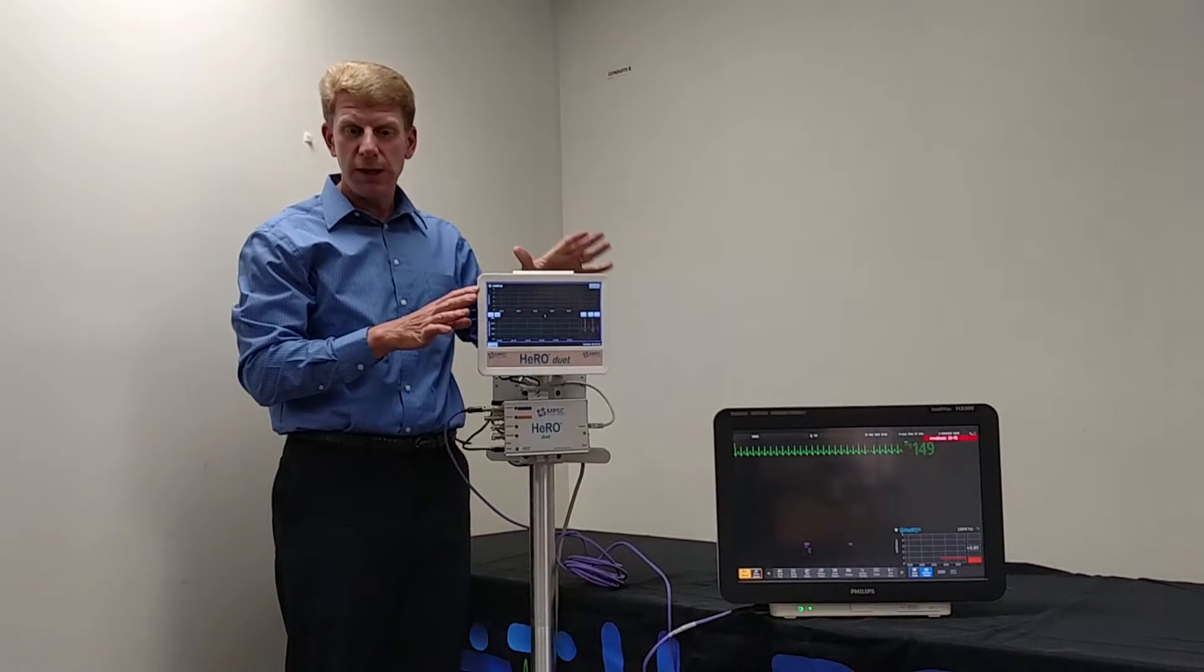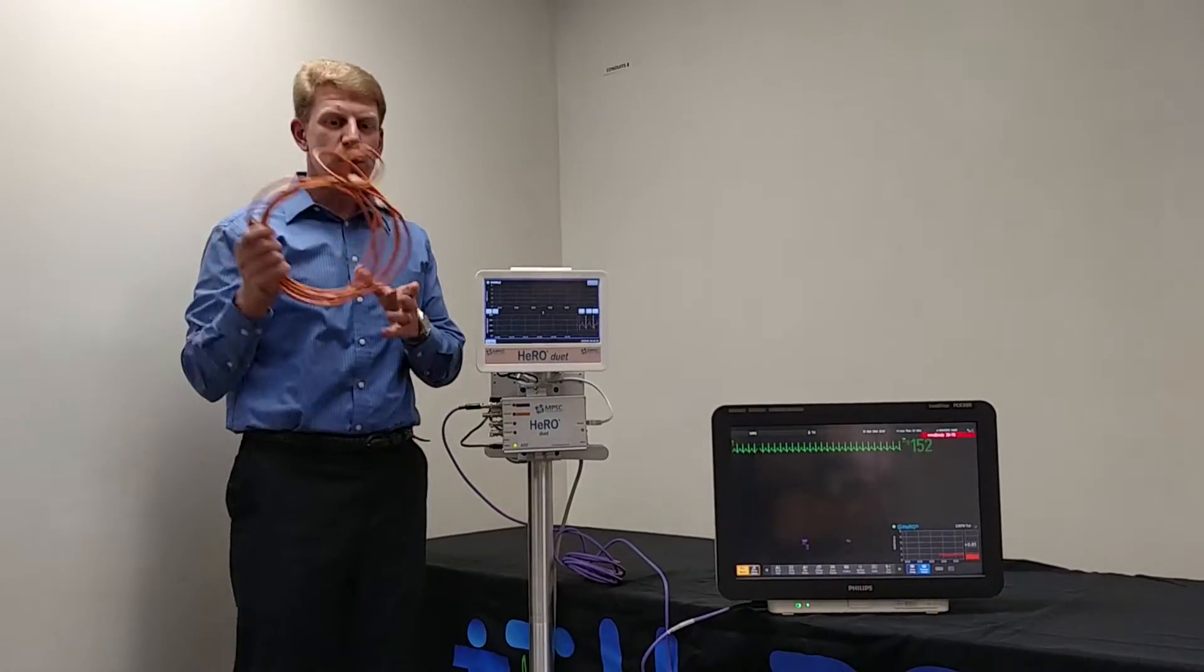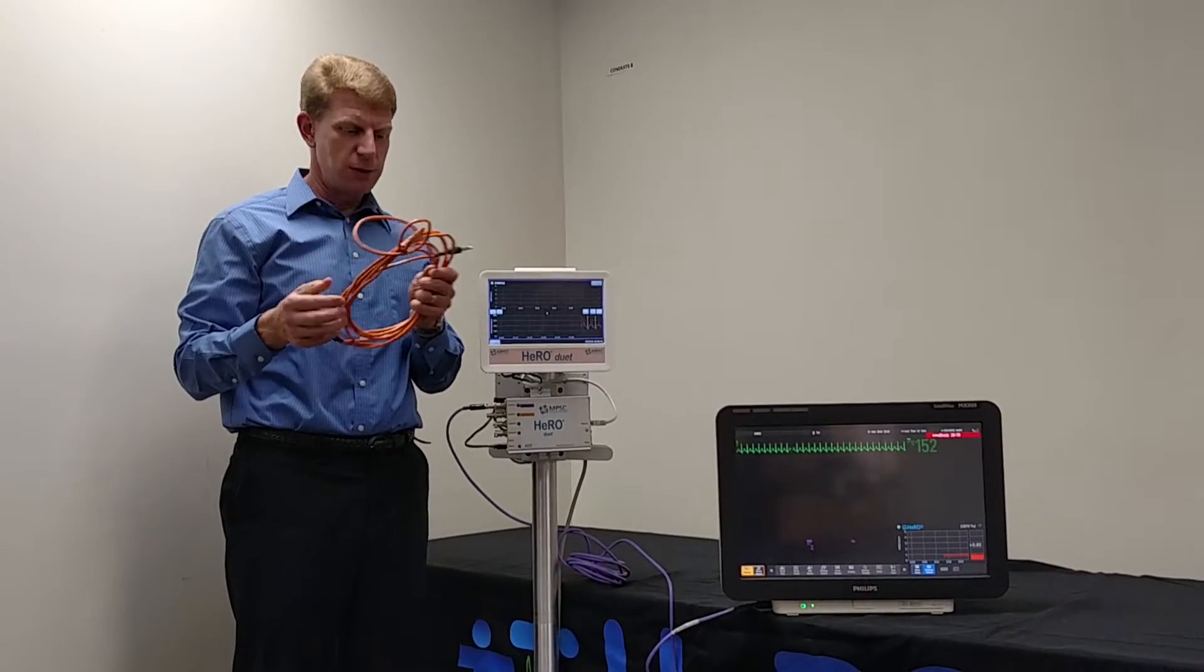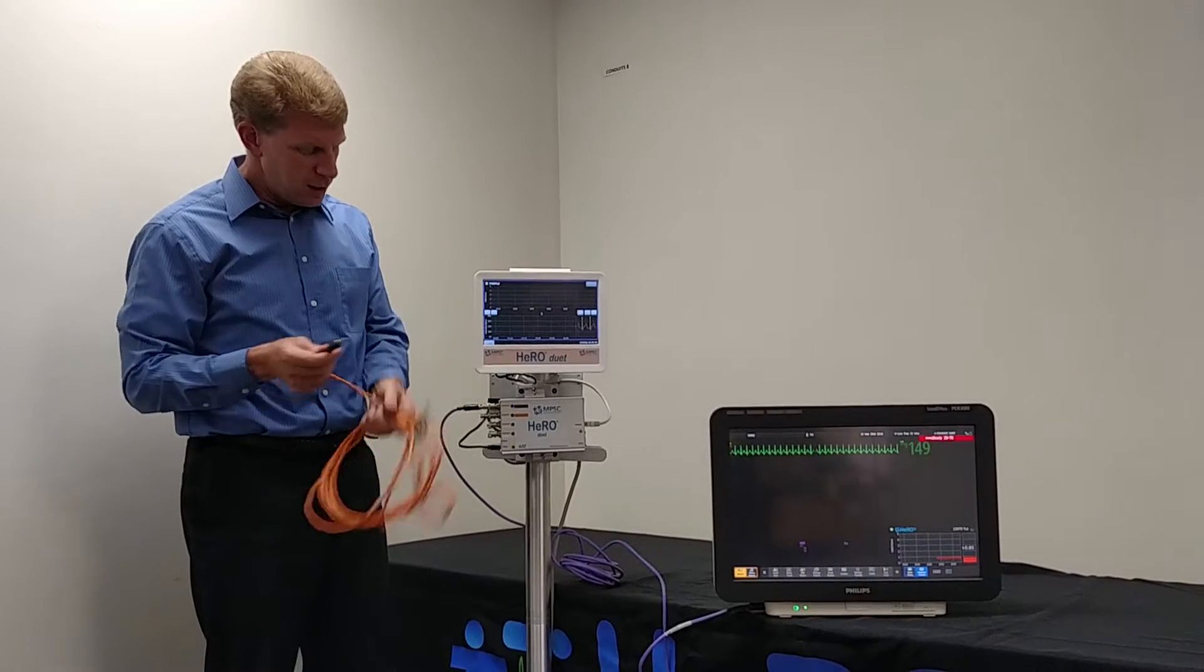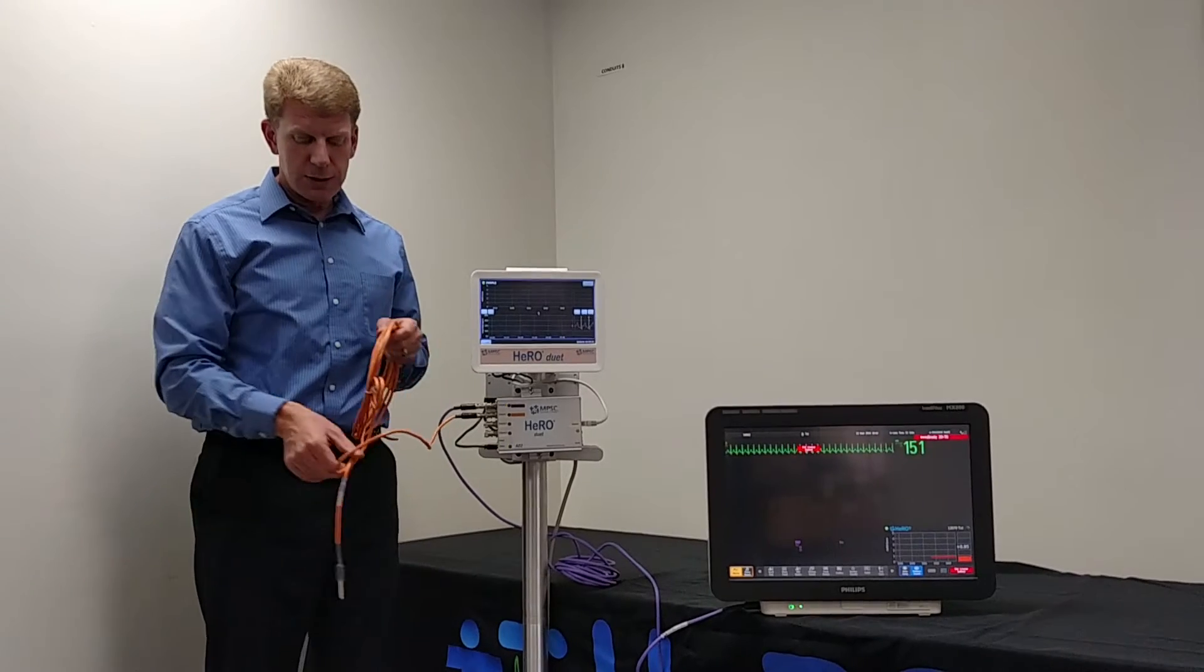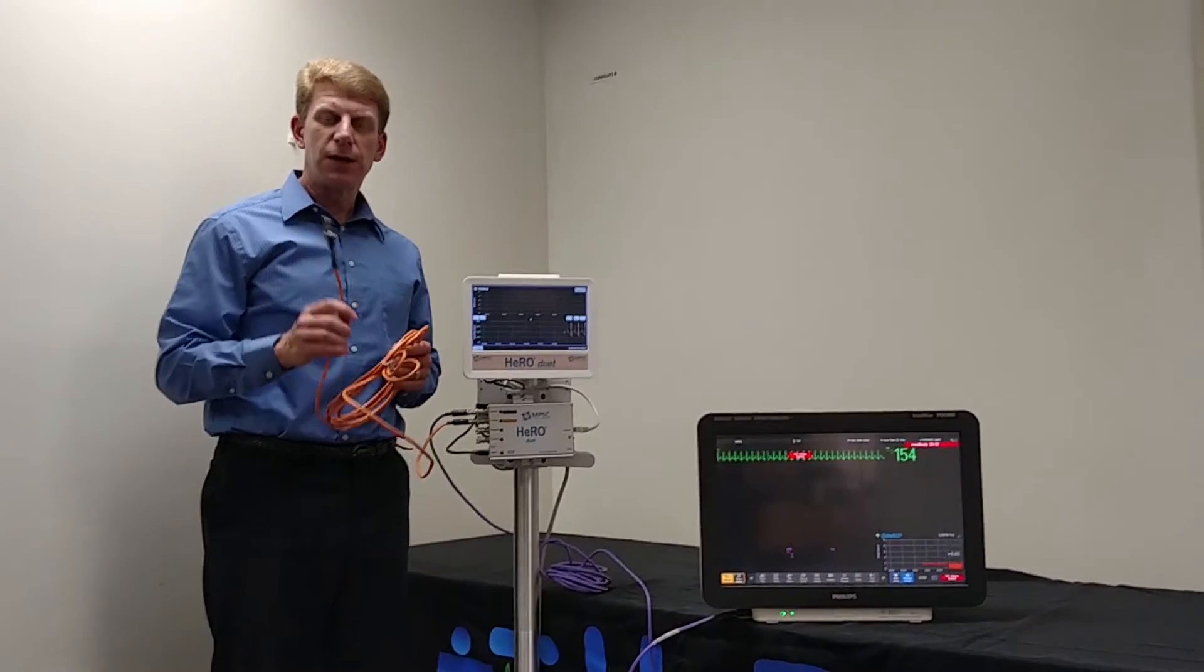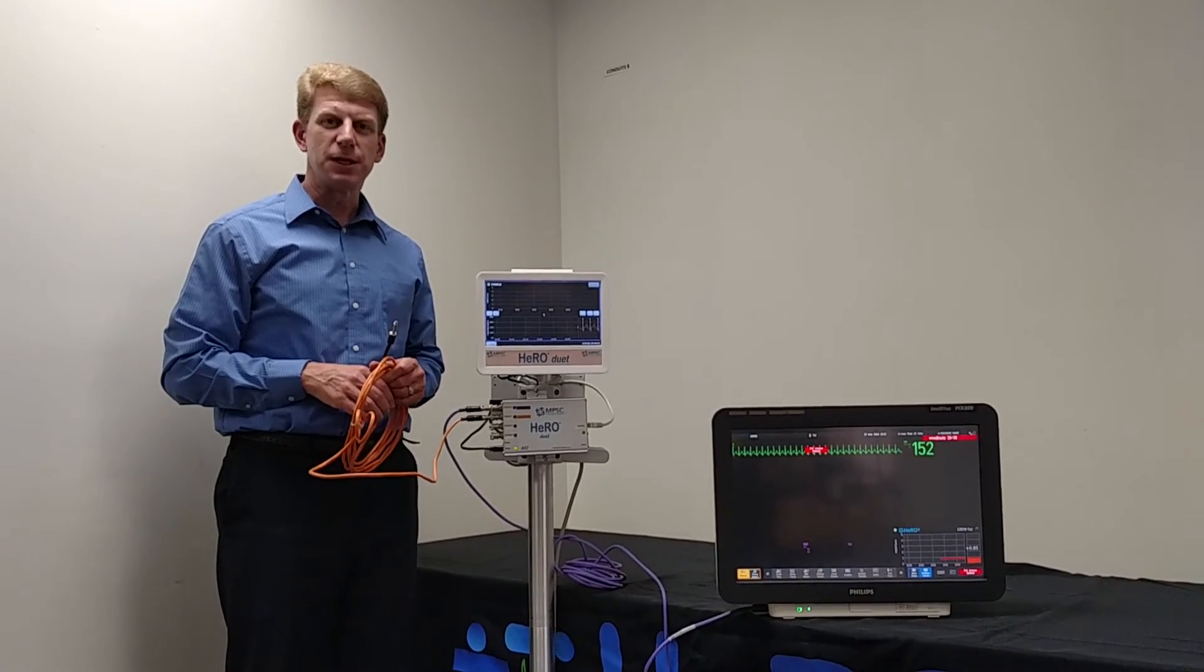With the Hero Duet, the only difference would be that Hero Duet has a second channel as well. Just getting a second cable. We supply orange cables for the second channel in the Hero Duet and the second patient. Very similarly, I plug this into the 82, make that connection solid, and then this will be to plug into a Philips monitor. Again, we sell those cables for all the different monitor types.